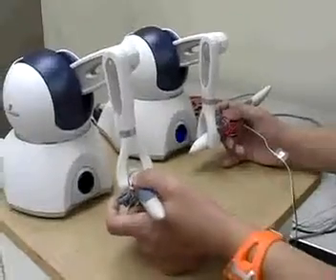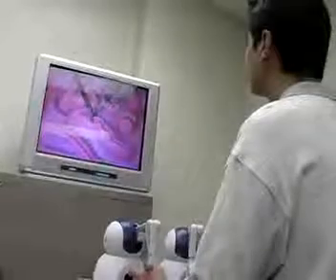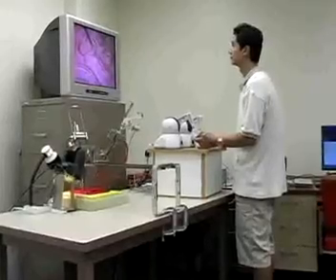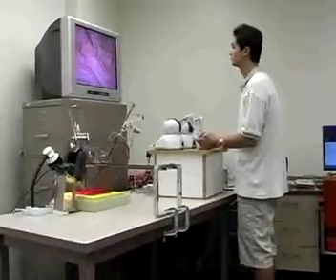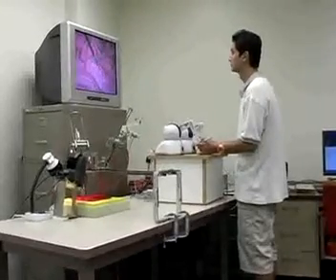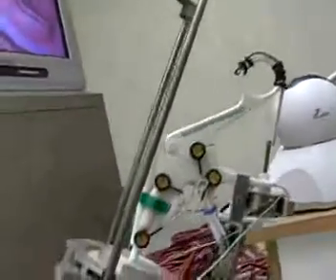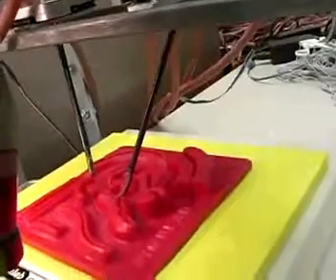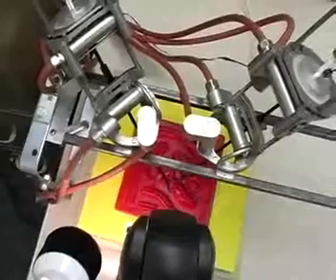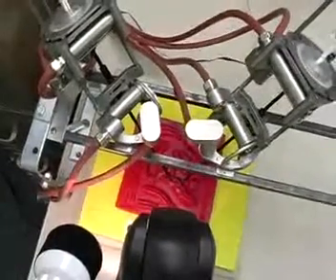Standard haptic interface devices are used with a television monitor for the tele-operation master console. The slave surgical manipulators are supported above the patient on a lightweight, rigid frame clamped to the operating table. The orientation of laparoscopic instruments is controlled by a pivoting ring and arch mechanism, and the insertion depth by a rack and pinion. No additional linkages are necessary to realize pivoting motion centered on the incision points.